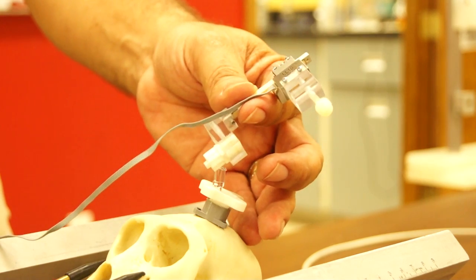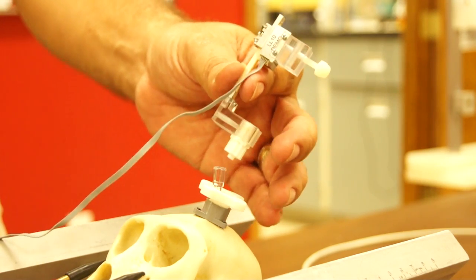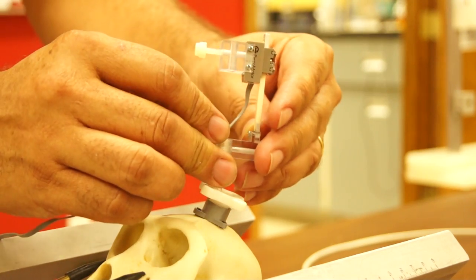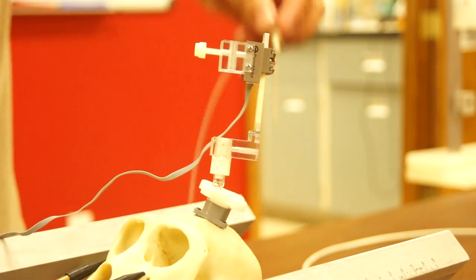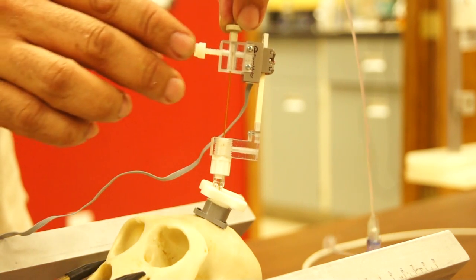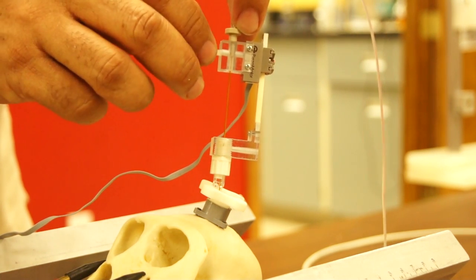It uses a piezoelectric linear motor and it mounts to the navigus like this. The catheter is positioned the way it would be with the remote introducer and secure it.